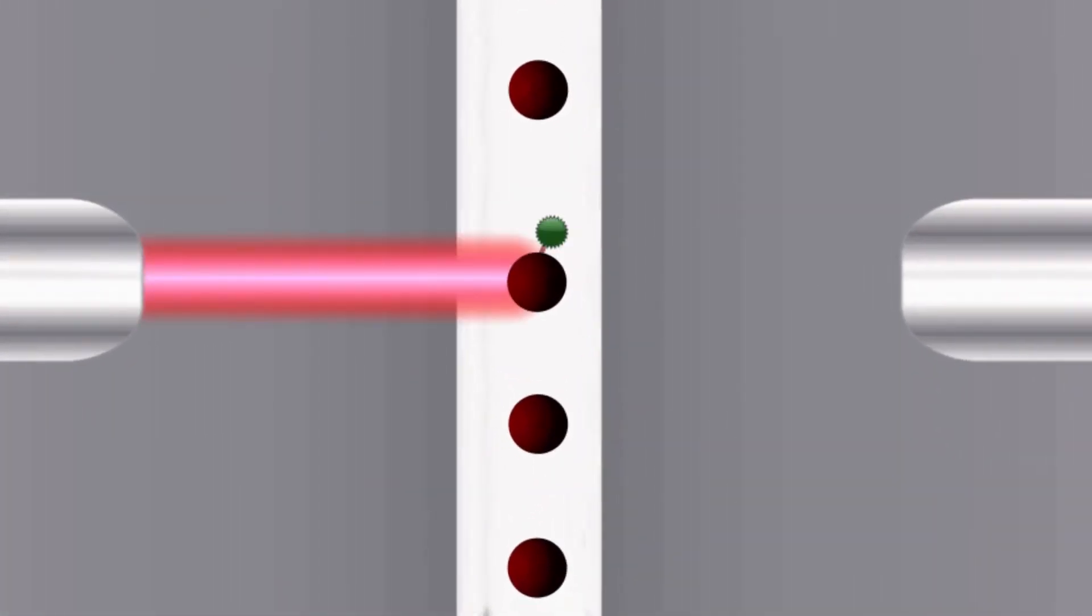The red 620 nm laser excites dyes within the beads to identify the bead region. The red laser works with a set of sensors that detect the dye concentrations of the bead.